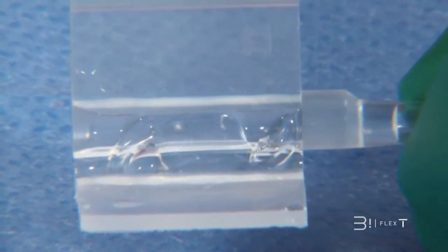Fold back the haptics near the optics without overlapping them. Check that the haptics edges are positioned under the cartridge gutters.